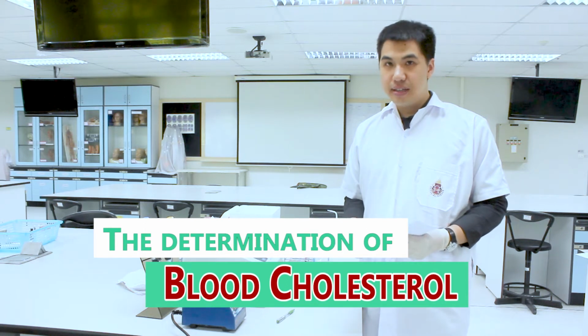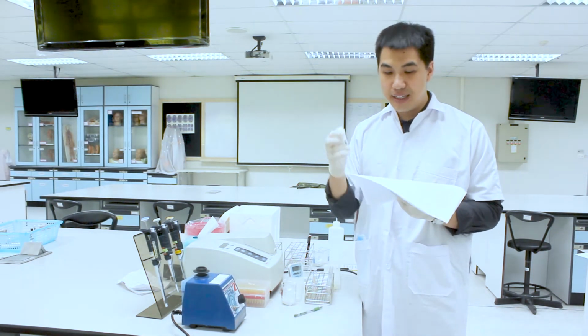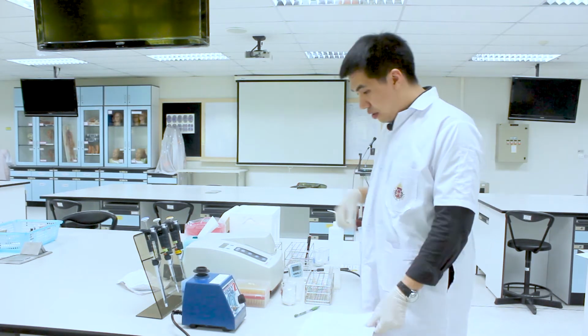In this laboratory, we're going to use a reagent that contains two enzymes. The first enzyme is cholesterol oxidase and the second one is cholesterol esterase. I hope that you can differentiate between the role of these two enzymes in the reagent. What is the role of the enzyme, basically?